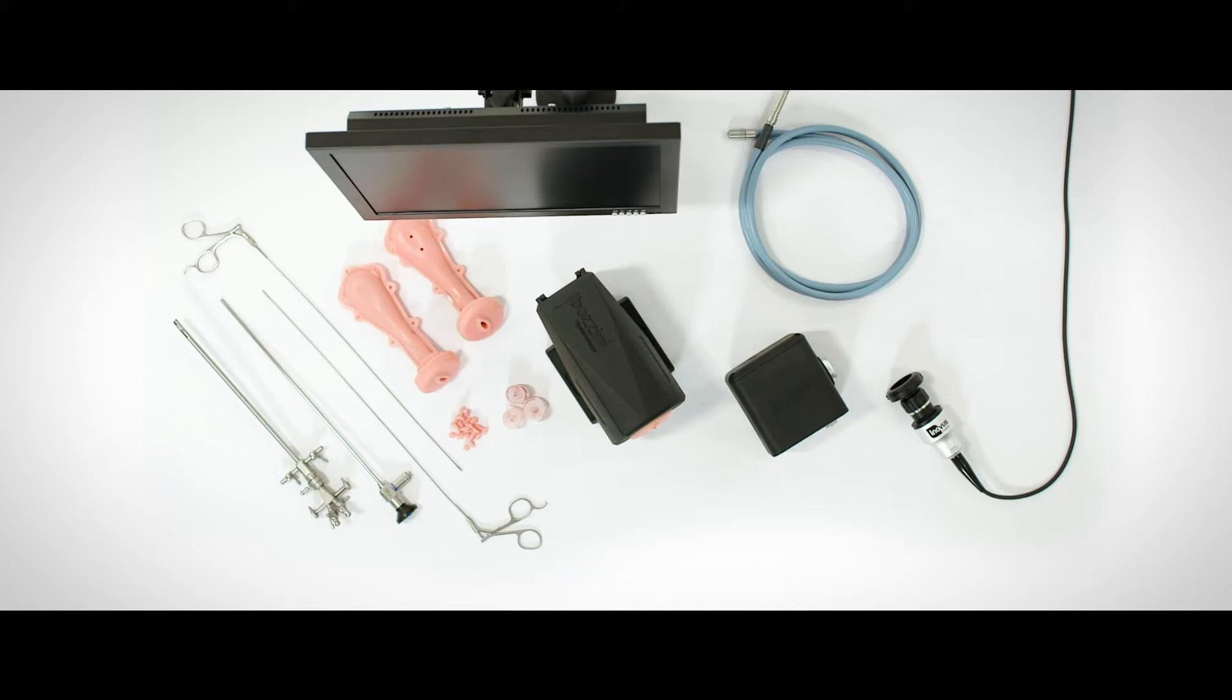The simulator also comes with three uterus models: two of our dry lab models, which can be used with our polyps and adhesions, as well as a fibroid uterus for diagnostic purposes.